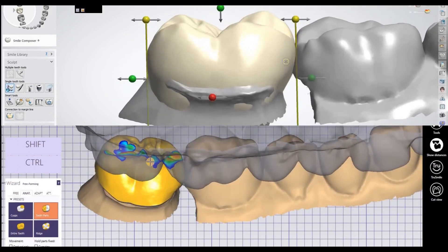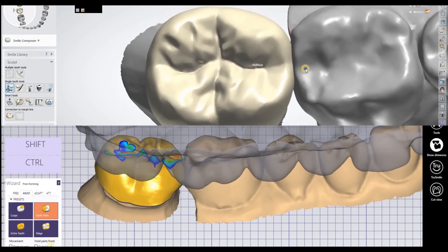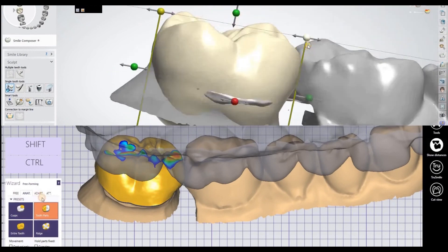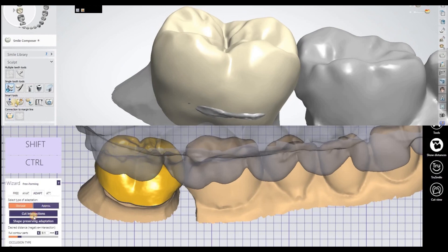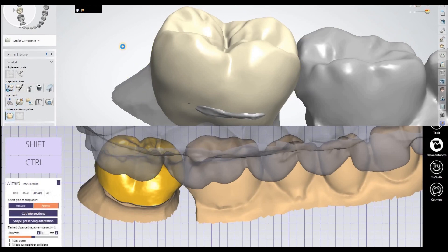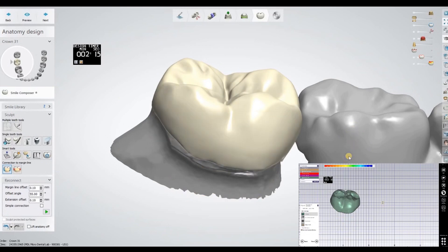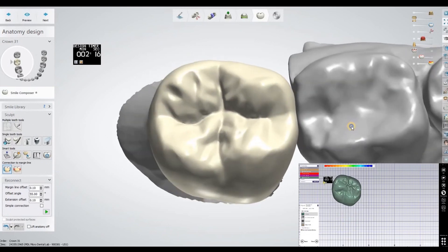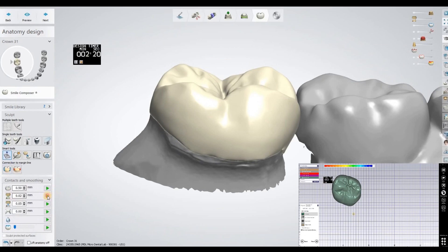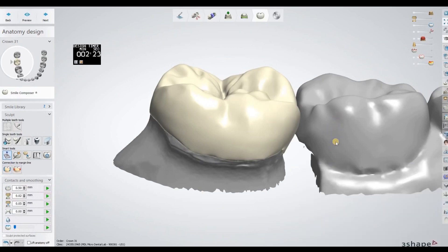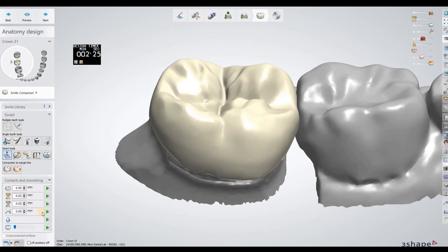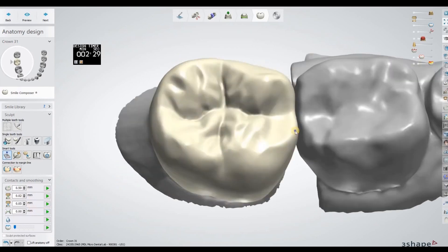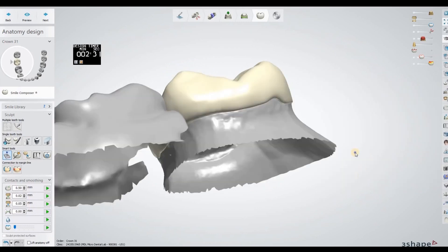When I go to adapt and cut intersection for the occlusal, I don't ruin so much of the occlusal surface. I'm going to do the same thing for the contact. In exocad, I'm basically already done. I'm going to do the same thing in three shape. My occlusal parameters are at 0.02 millimeters, and my distal contact settings are at 0 millimeter.